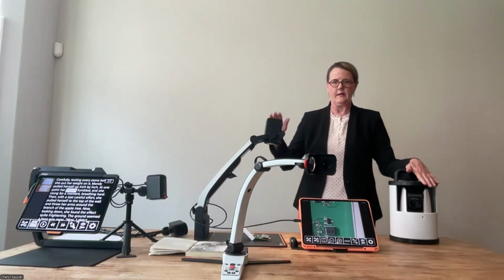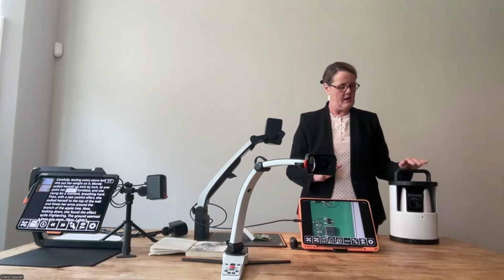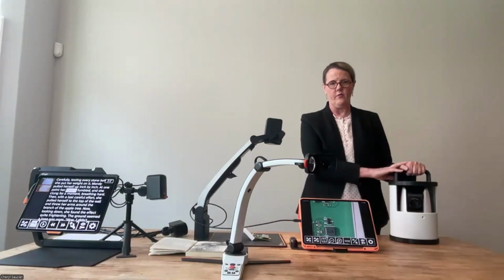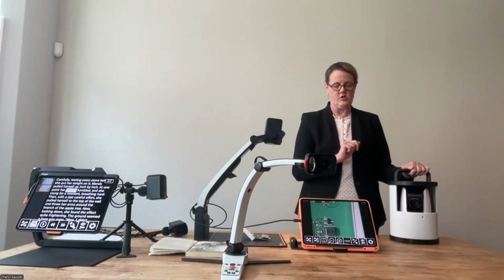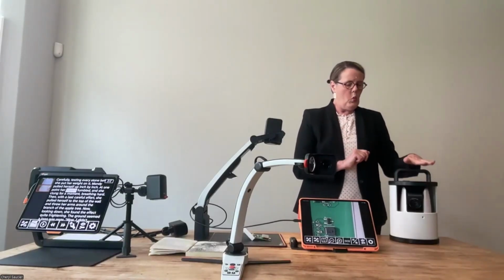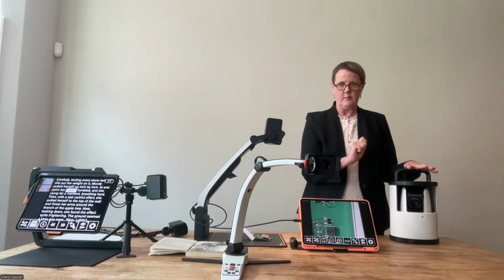Again, it's got that same high-powered camera, a 30x optical zoom, so a large auditorium type space. This is going to zero in on that content all the way at the front of that environment, and you can pre-position places throughout that environment and move the camera to those locations. A tricky thing with this one is when multiple students are connected to it, they do have the ability to use settings within our Magnilink Viewer app to customize their experience.